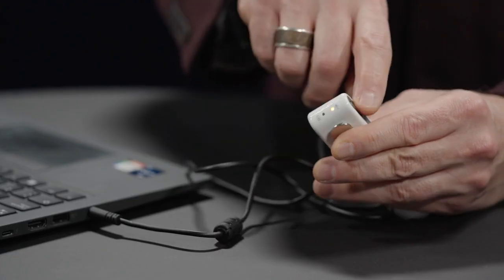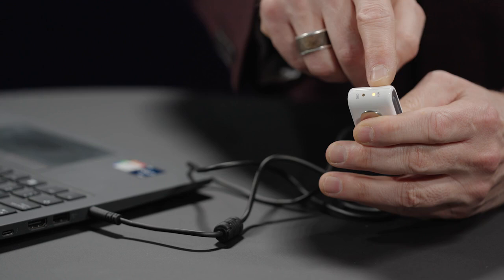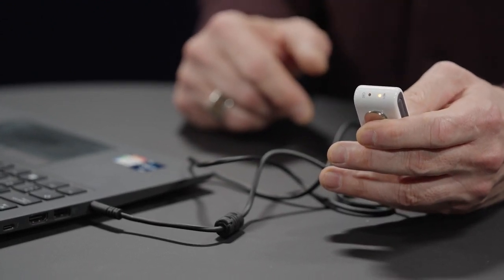To resume or continue receiving those sounds from the laptop, simply press and release the power button, and the solid yellow light indicates that we are now receiving that information.